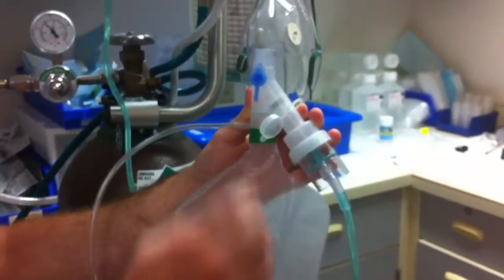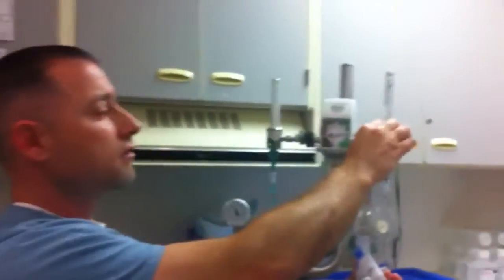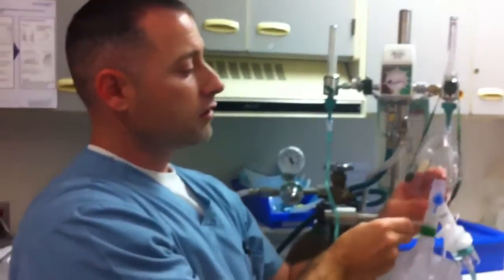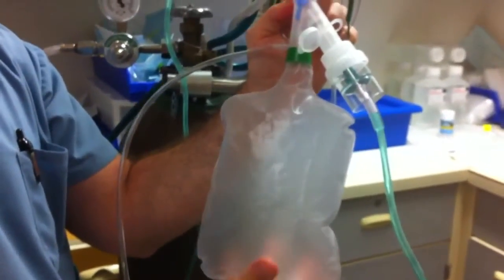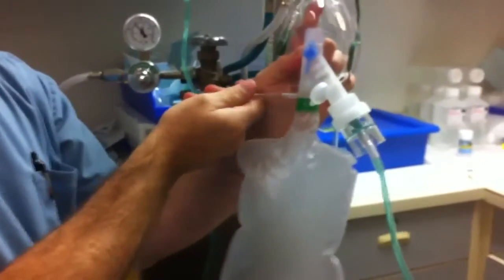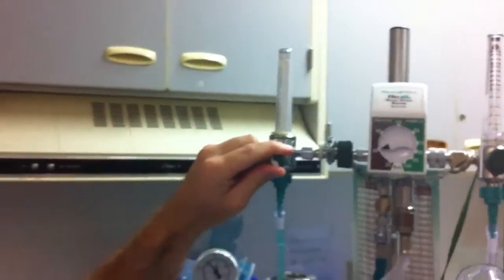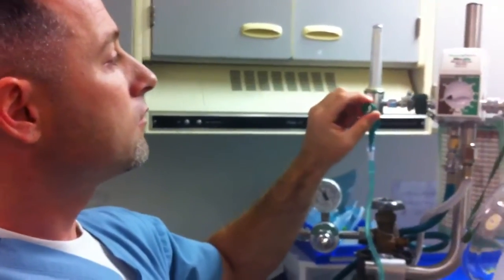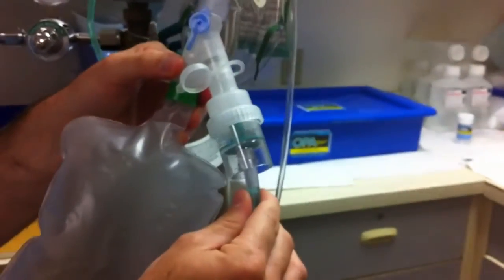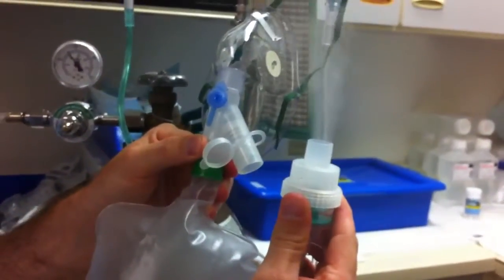What I'm going to do now is turn on our flow meter for the non-rebreather side. You can see the reservoir inflate. We also have another flow meter on the other side of our blender, and that's what's attached to our nebulizer treatment. As I increase this, you now see you're nebulizing — the nebulizer is working.